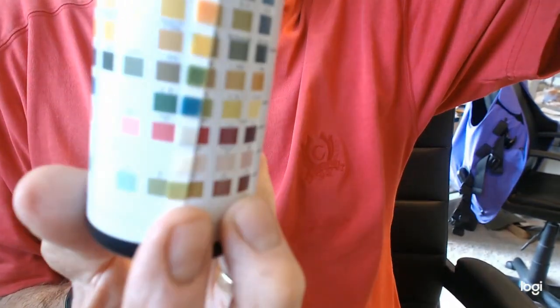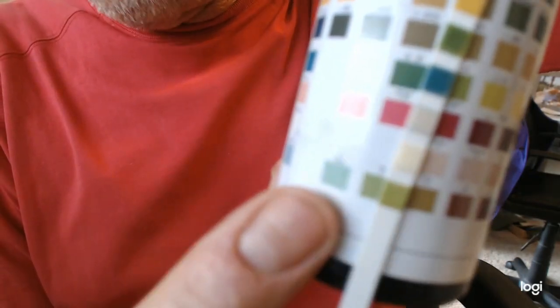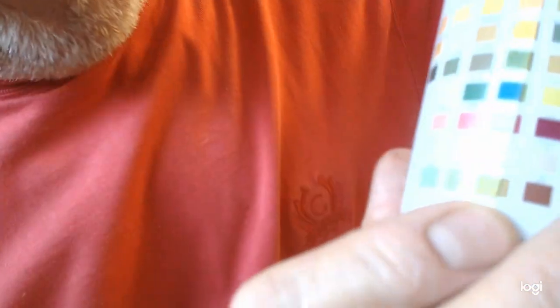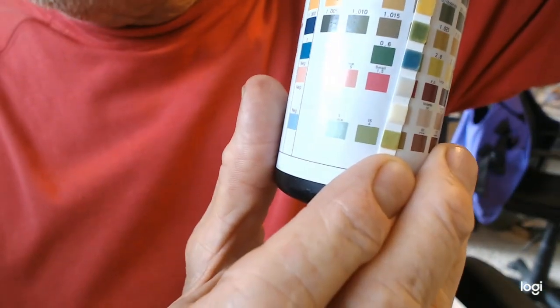Well, the thing is, you're not supposed to have any glucose. So the fact that you're over here, you don't have a whole lot of glucose in this one. Yeah, there it is. You can see that color now. It's about between here and here. So this is glycosuria.